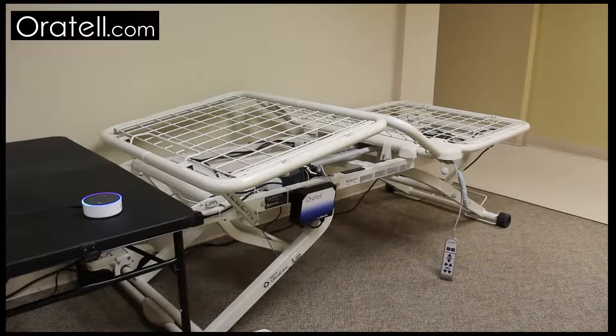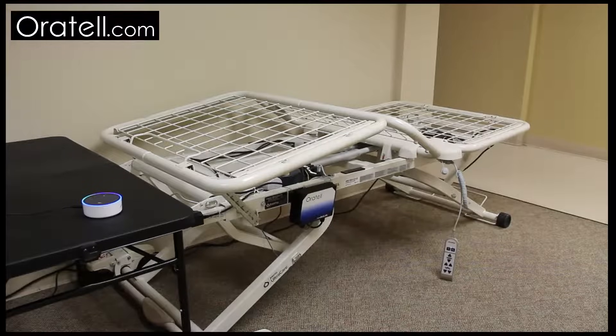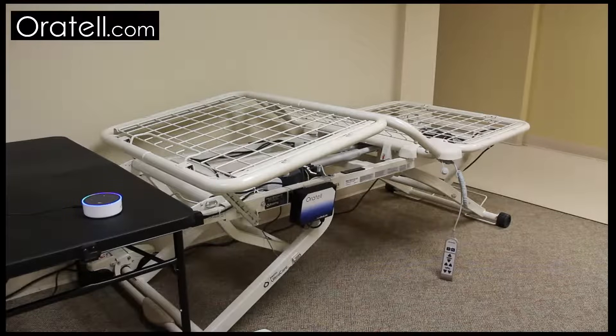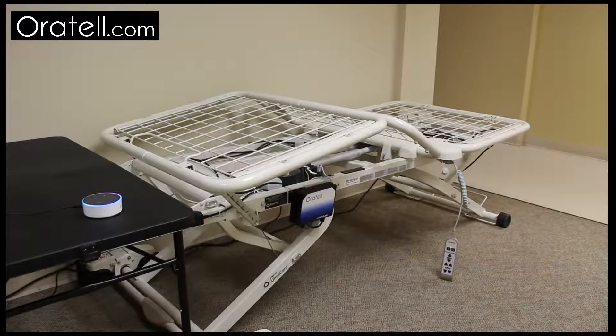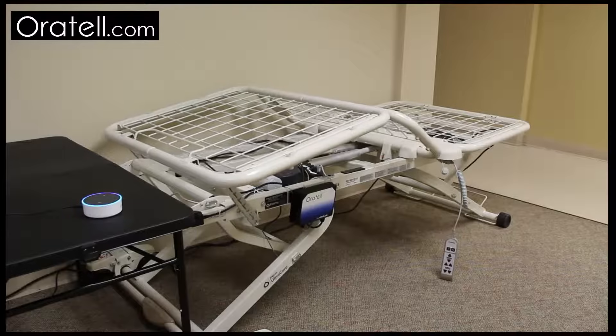Alexa, tell bed control, raise my feet up, 1. Raising your feet up, 1.